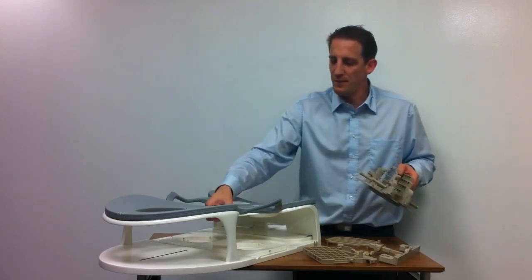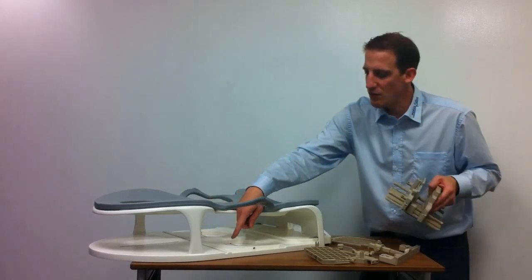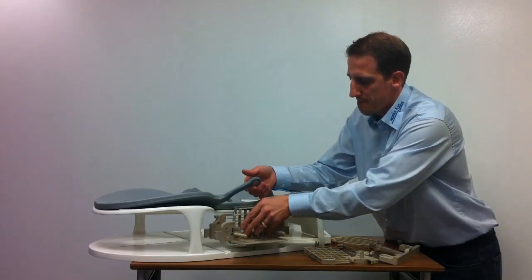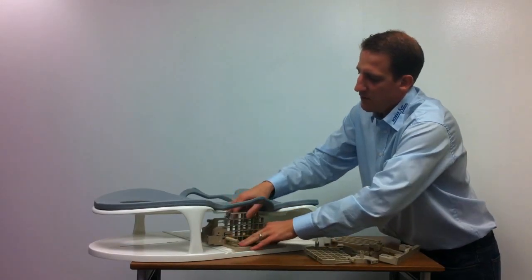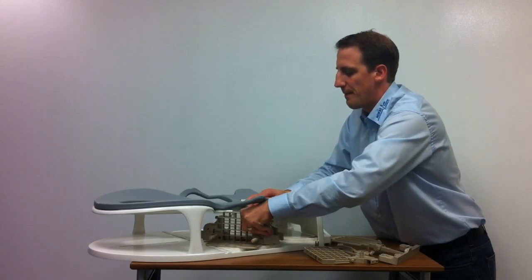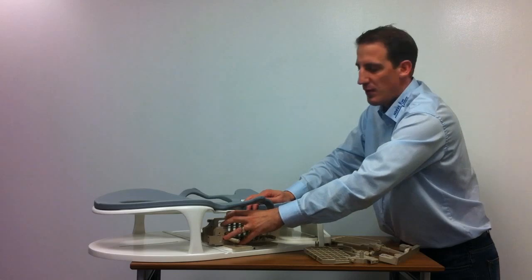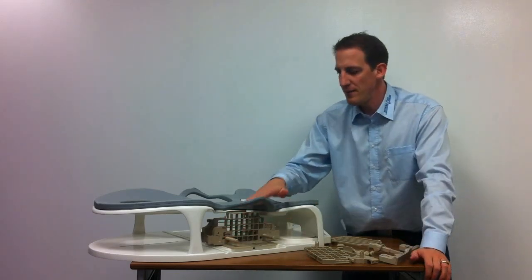And then once we're done, we can carefully plug it into the coil. You can see the cutout here — the groove. We can also rotate this 360 degrees, which gives us a very comfortable access of approximately 270 degrees to the lesion. In this case, the biopsy will be performed laterally.